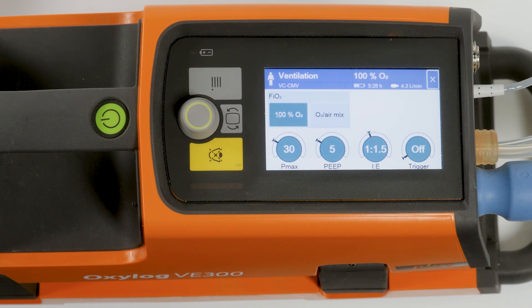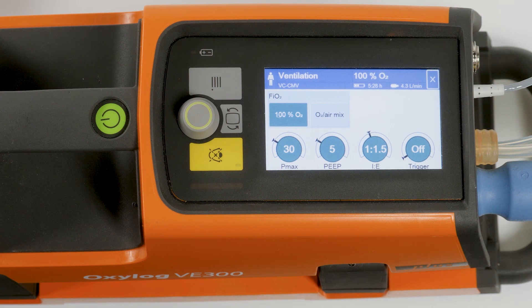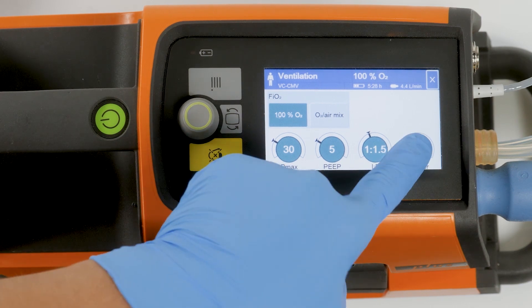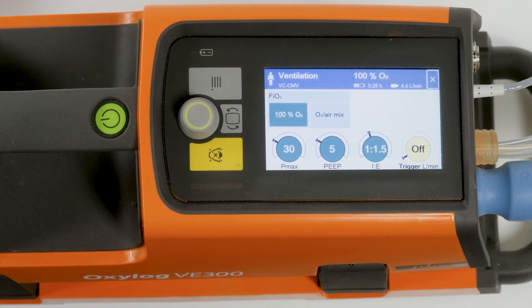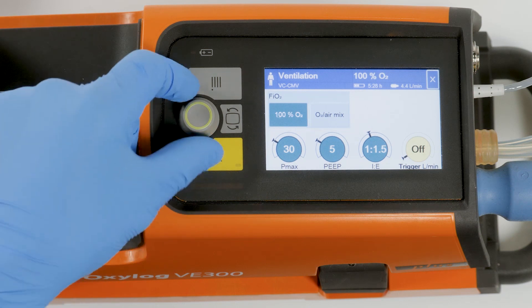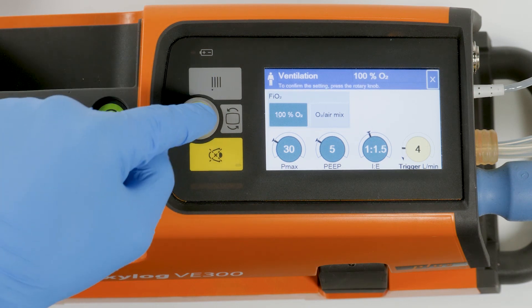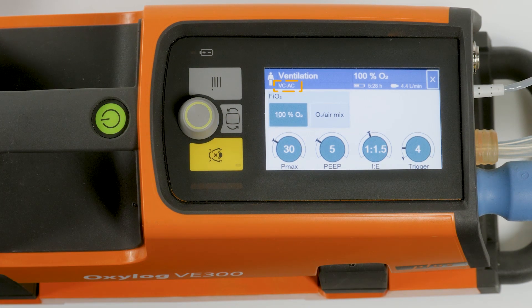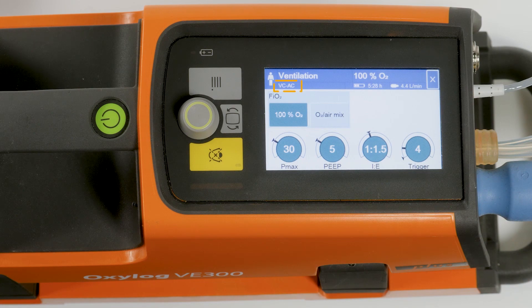Touch the button Trigger, then turn the rotary knob to adjust to the required value and confirm by pressing the rotary knob. The ventilation mode VC-AC is now displayed on the screen.